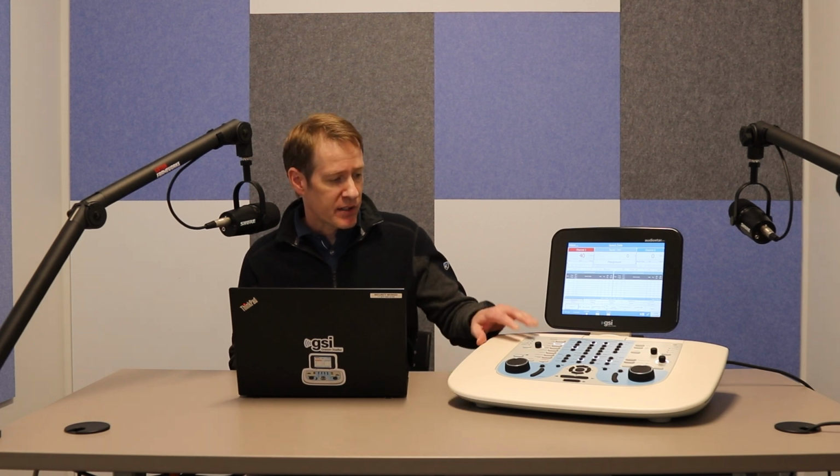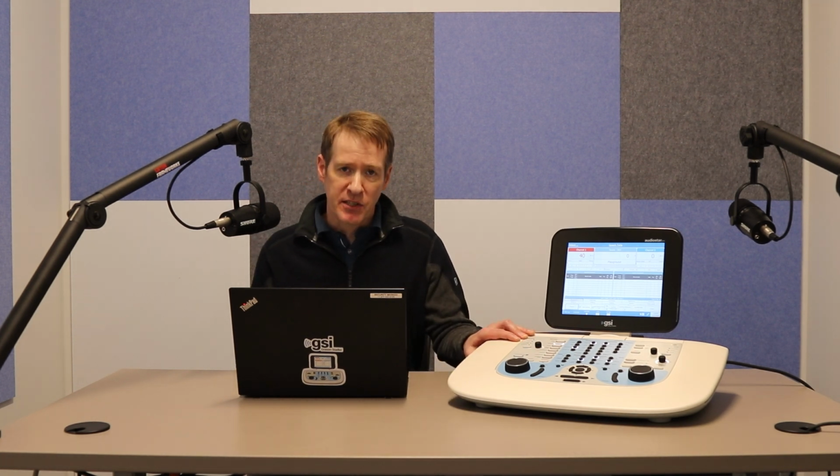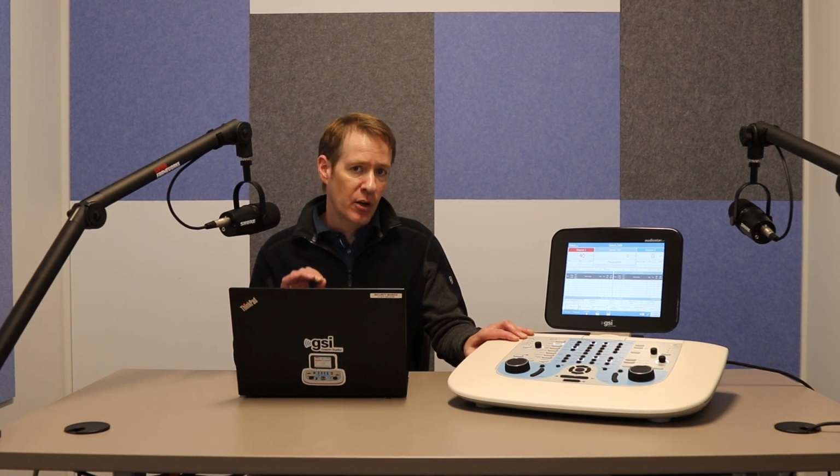Today, I'm excited to share with you some new changes that we've made to the AudioStar Pro with version 2.1 of our firmware. What I want to talk to you about is some features that we've added into our speech screen. So when you're navigating on the AudioStar to speech and you're ready to do some speech testing, we've added some more flexibility on how you can control how the autoplay features work and also how you can set limits on the number of words that are presented through the autoplay mode.